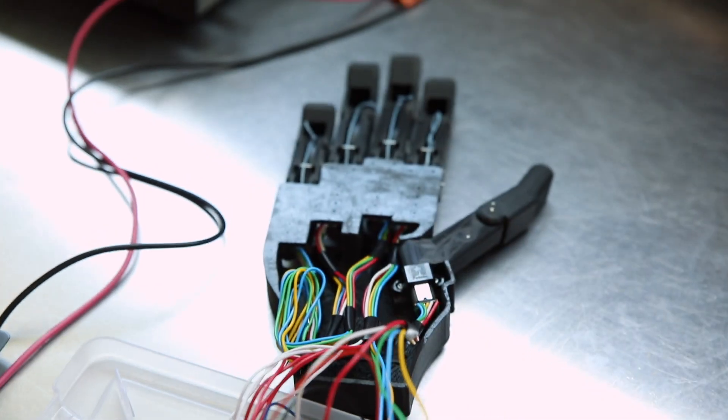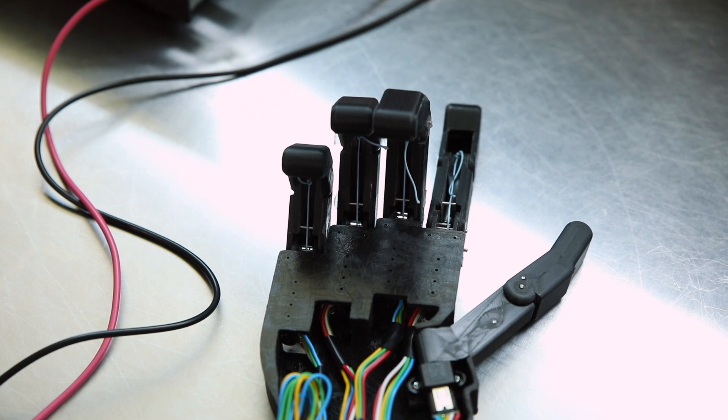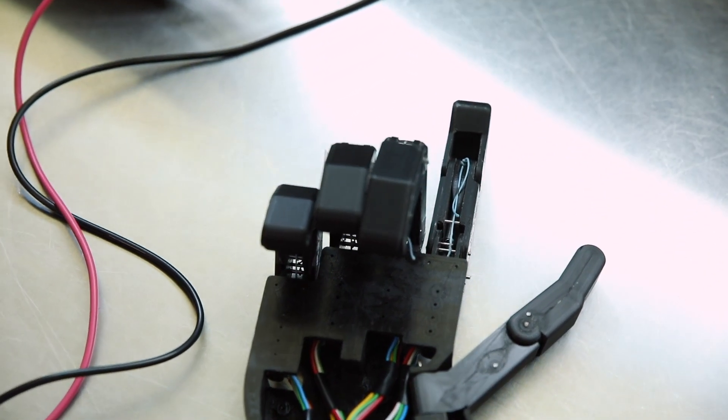The most exciting part of designing the prosthetic hand for me was learning about all the things during the process—how to design a product from scratch to the end. I think that experience was really valuable and designing mechanical devices or medical devices is exciting.